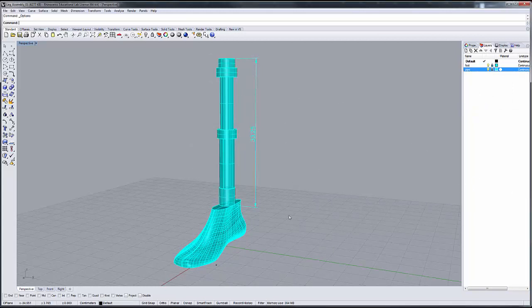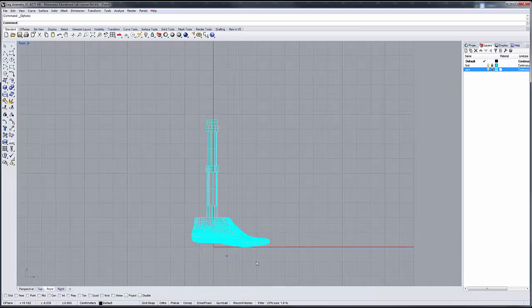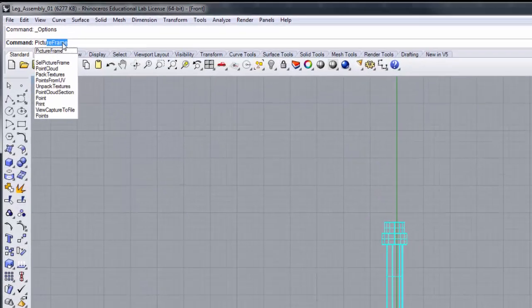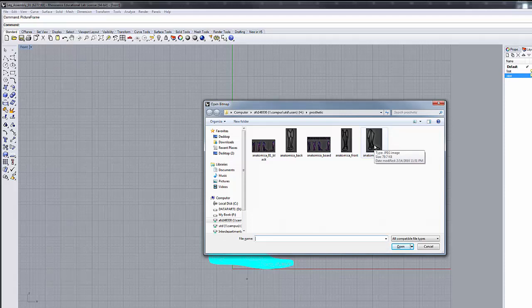Our model starts out with our prosthetic assembly — basically the footprint here and the pipe which attaches to it. It's to this pipe that we're going to attach our prosthetic cover. The model is in centimeters. This gives us our reference height and this gives us our foot. We're going to use this foot as a reference to bring in our drawing components. In the front window I have basically the profile or right side of the foot. The command we use to bring in our images is called picture frame.